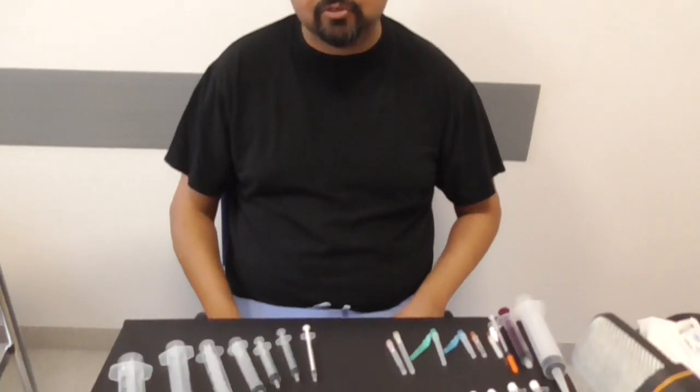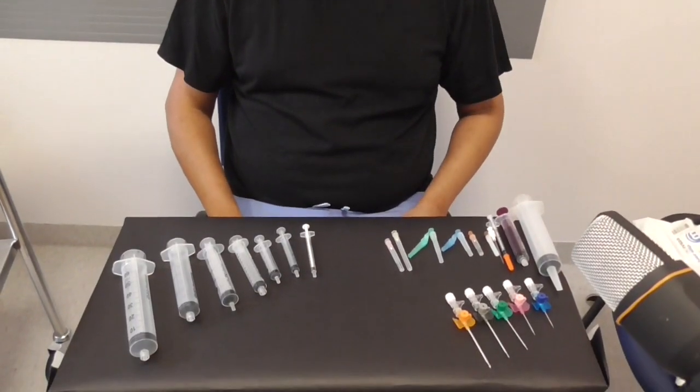Hi, I'm Sanjay Mujumdar. I'm a plastic surgery consultant from Yorkshire in the UK and for this medicine in a nutshell I thought we'd talk about syringes, needles and intravenous cannulae which are commonly called venflons after a trade name in the UK.